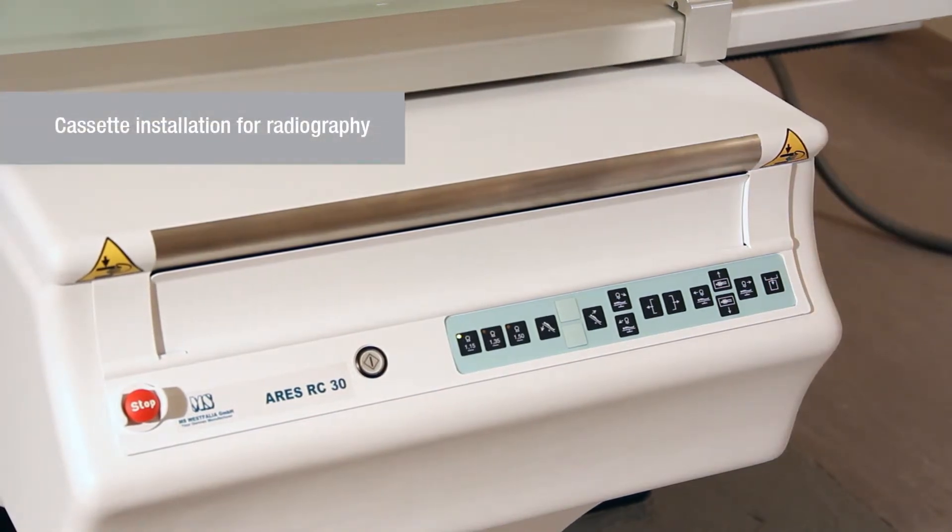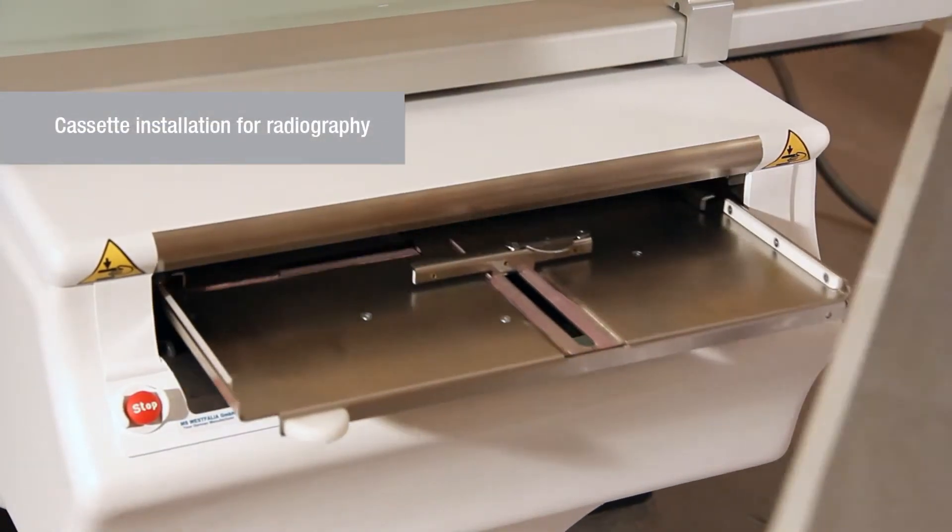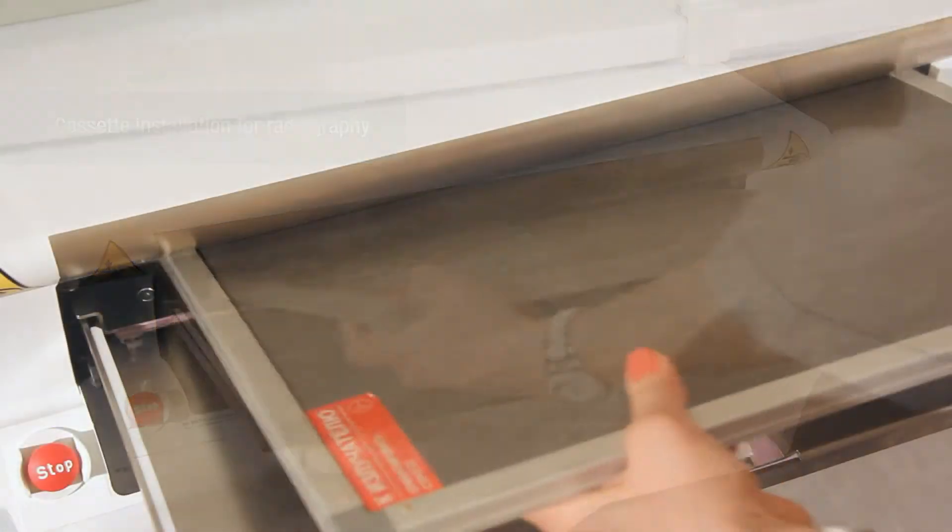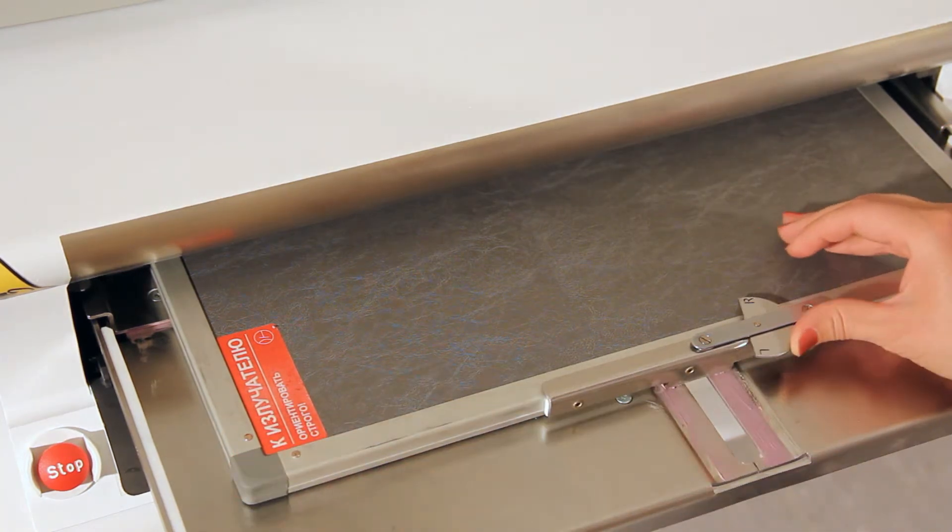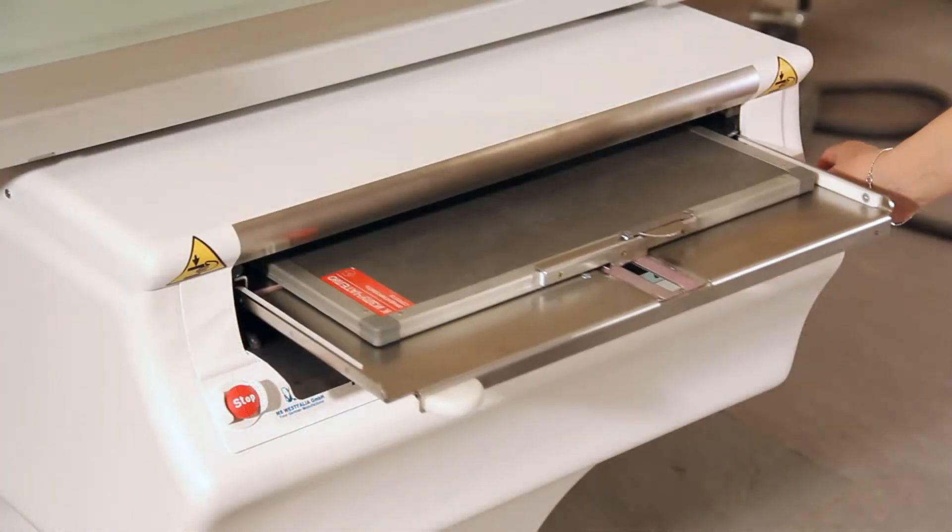This button opens the cassette holder. The cassette is automatically fixed. There is also an integrated marker to make image interpretation easier.